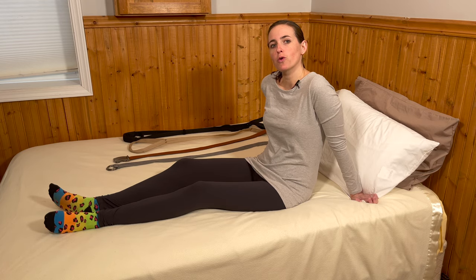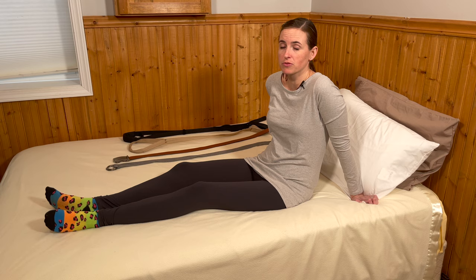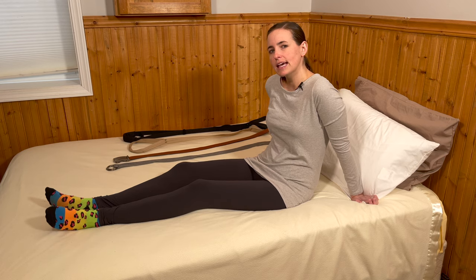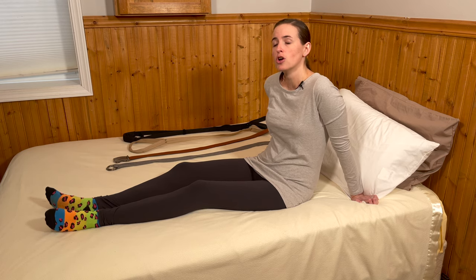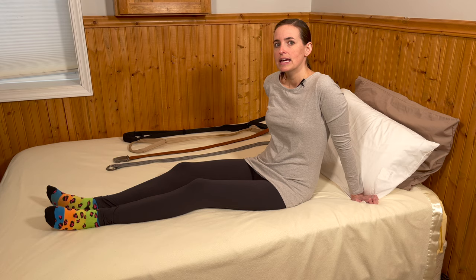If you've seen any of my videos before, I use leg lifters often and they're a wonderful tool. Today I wanted to go over four different types of leg lifters that you could use to improve your lower body movement. Leg lifters are often used when recovering from a surgical procedure, an injury, or elevated swelling or pain that has caused weakness in one leg. It's really important to recognize that a leg lifter is actually considered weight-bearing because it's pulled through the bottom of the foot traditionally. So if you're somebody who is full non-weight-bearing on a lower extremity, you must ask permission before using a leg lifter. Please clarify that with your surgeon or healthcare provider before using a leg lifter.